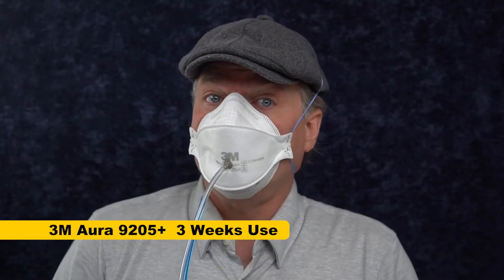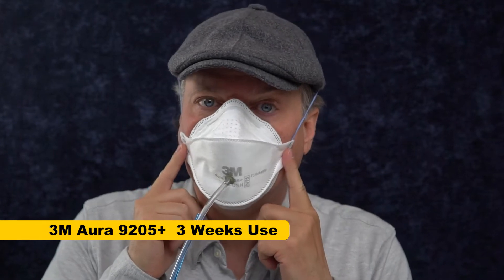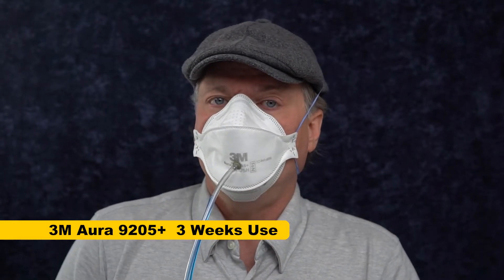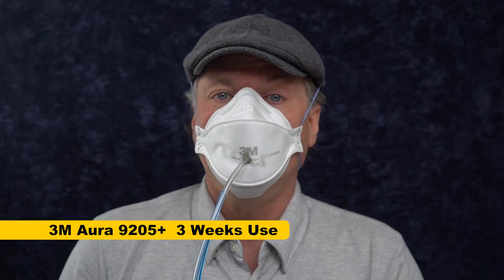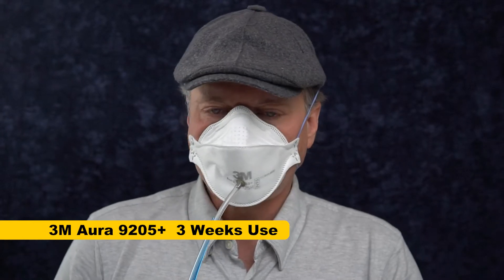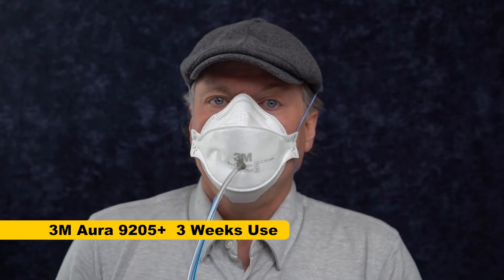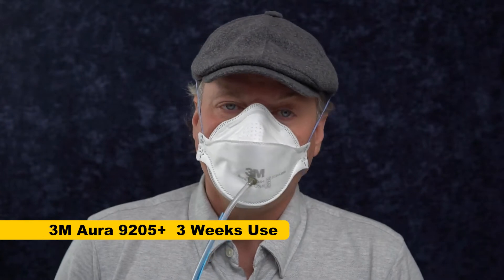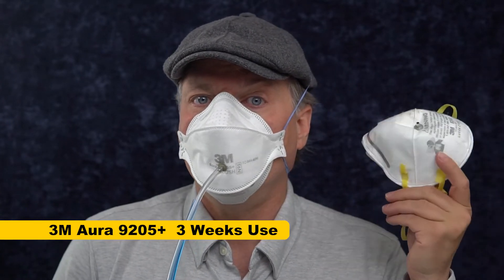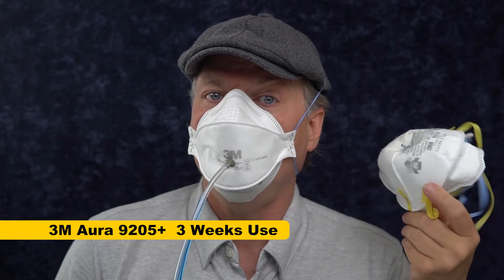Well, that was a lot harder than I thought it would be. I repaired the strap with a stapler and it immediately broke about the same place. It wasn't actually touching the staple — it's just brittle. So these straps can fail without any kind of warning. I can understand why that doctor was wearing a cup-style mask over his, even though it makes it hard to breathe through the combination and it's uncomfortable.